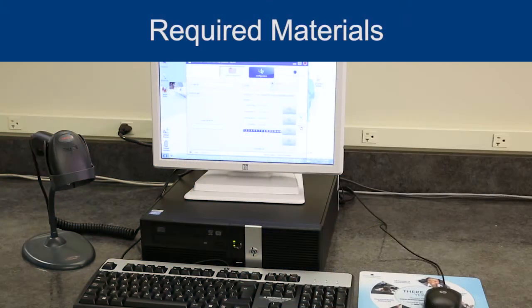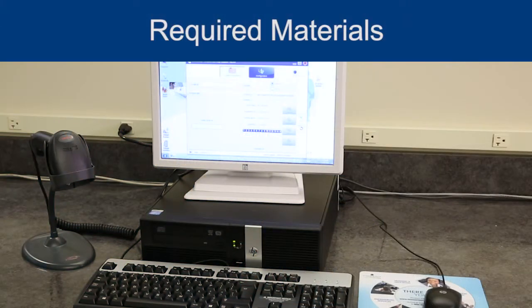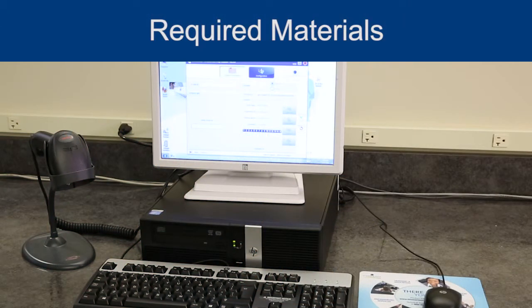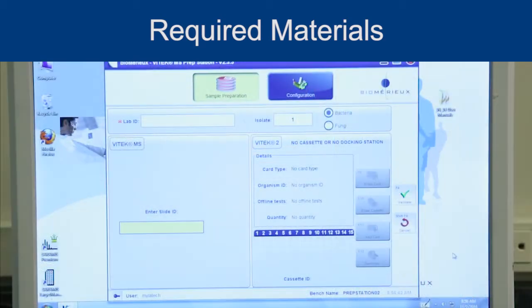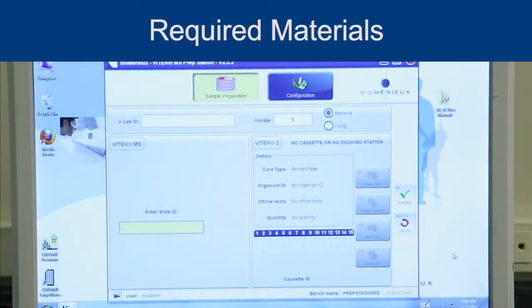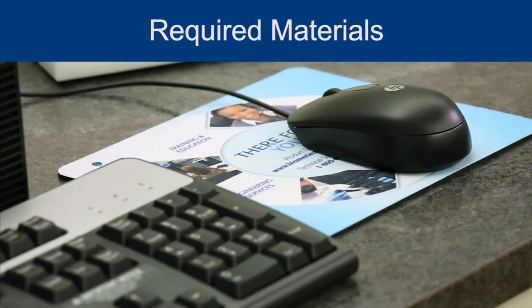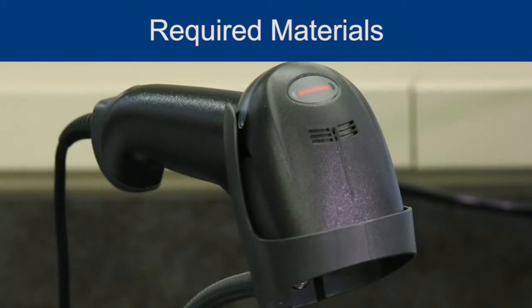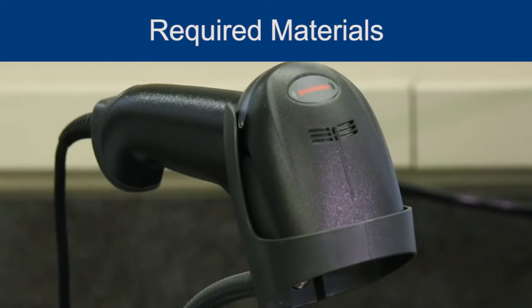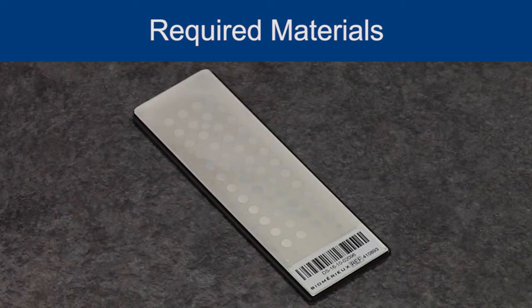Required materials: a computer with Vitec PrepStation software, a monitor, a keyboard and mouse, a barcode scanner, and a Vitec MS-DS target slide.